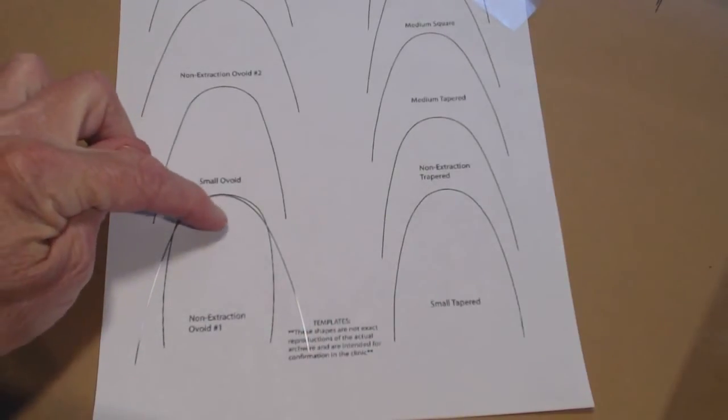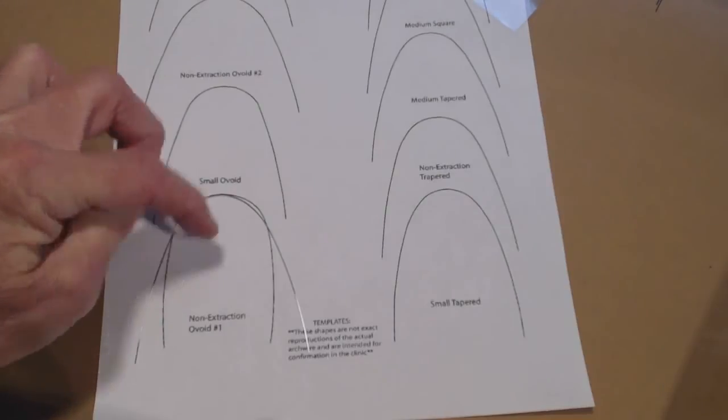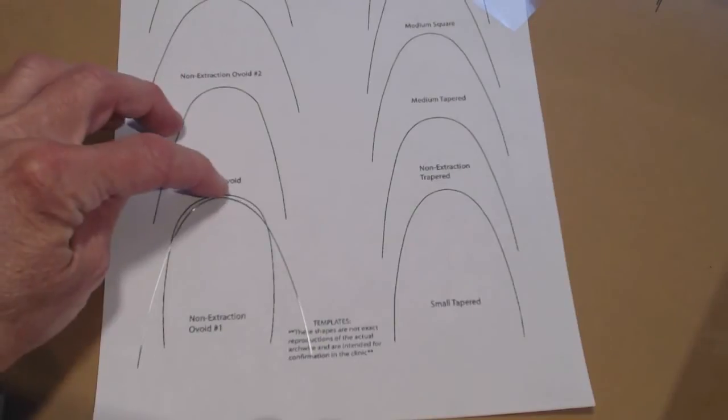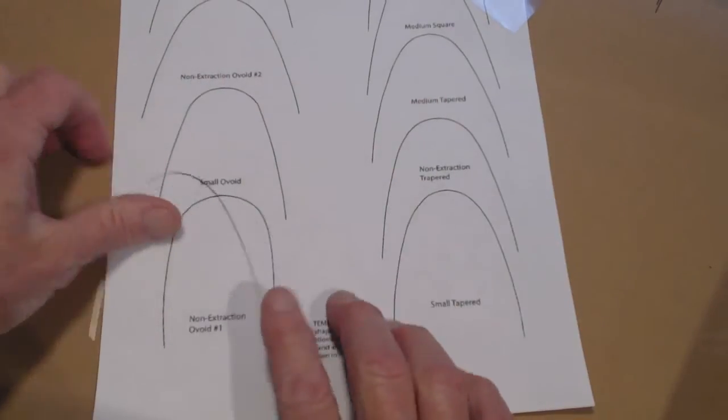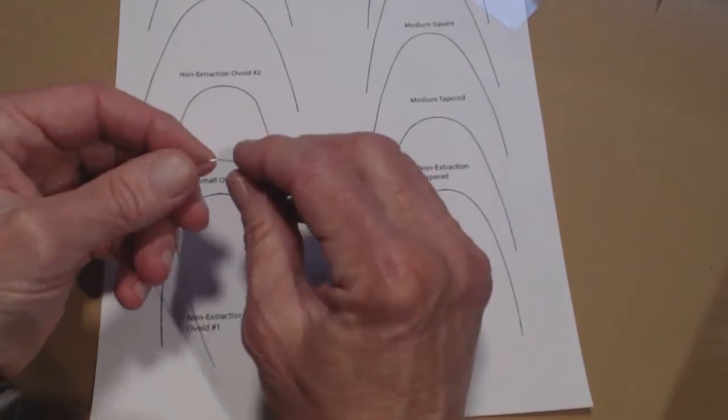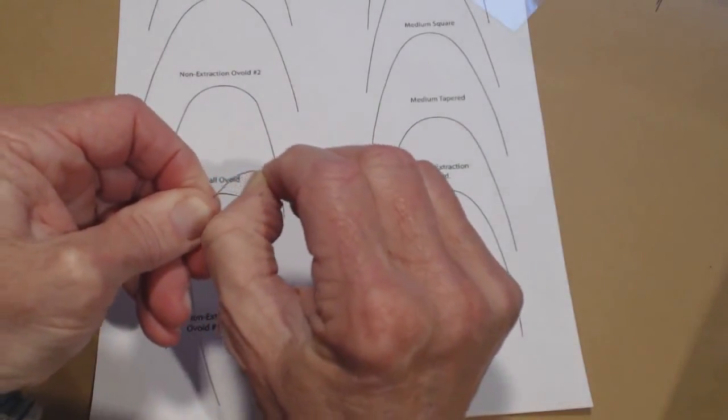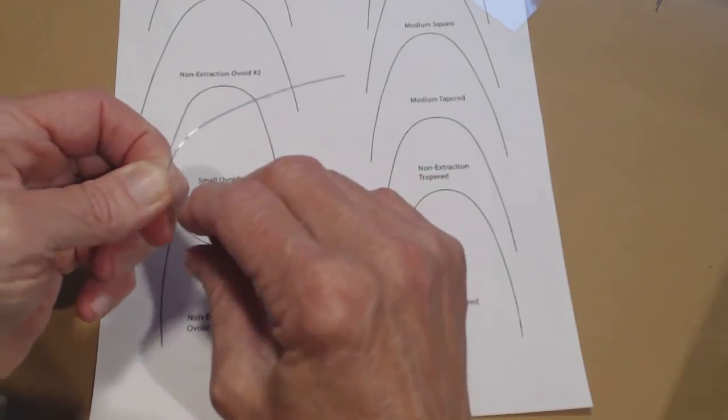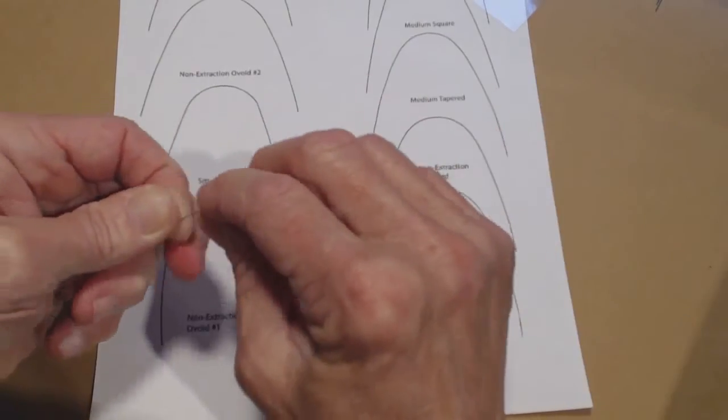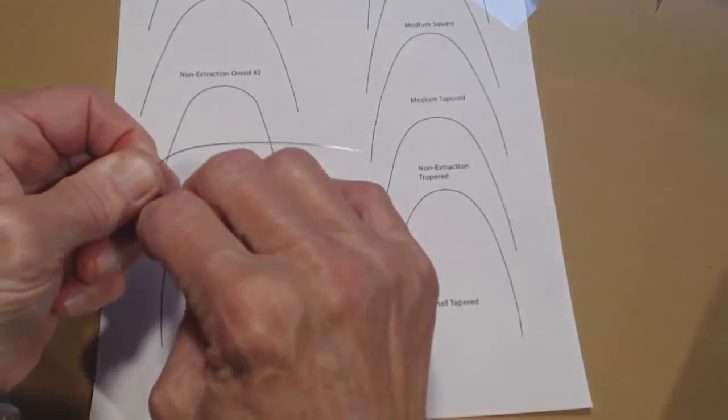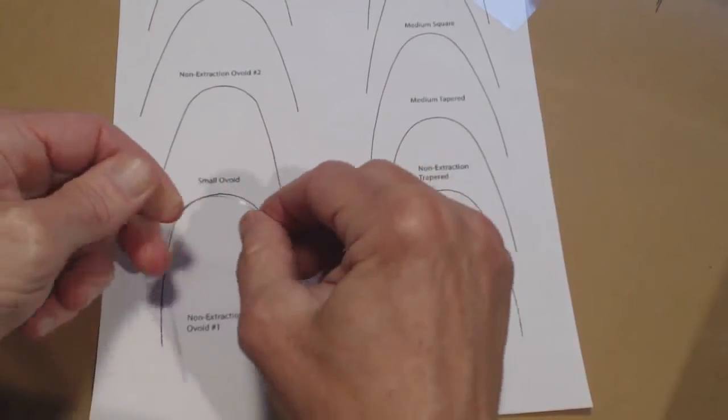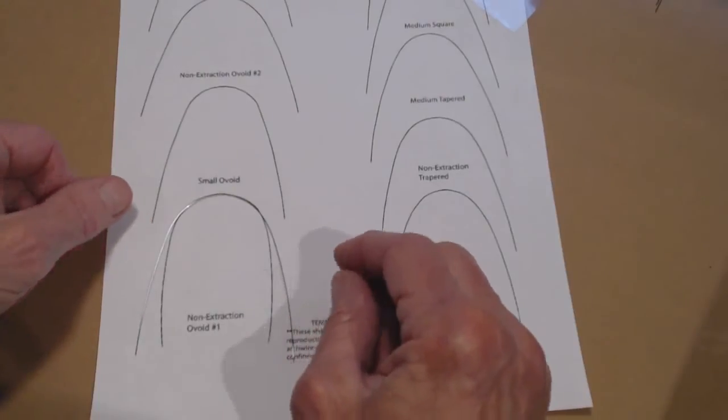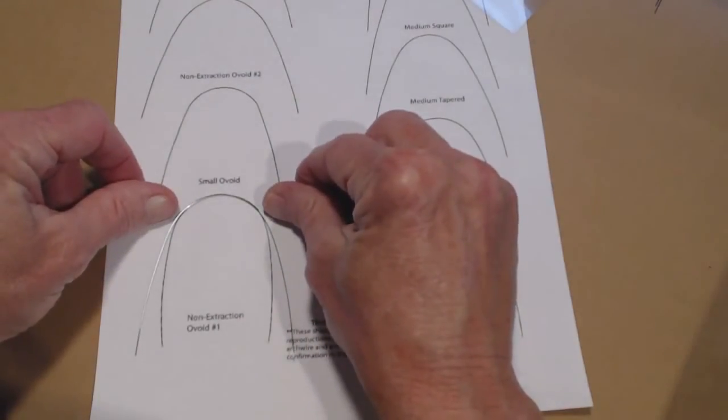The first thing I have to do is start in the midline and increase that radius. I'm just going to use my thumb and forefinger right here. And I will put more pressure outward with my finger than my thumb. And then that's going to change that curvature. And I'm going to keep doing that back here. And let's see how I did in the front. Yeah, so I'm not bad. I'm pretty good from about here to here now.